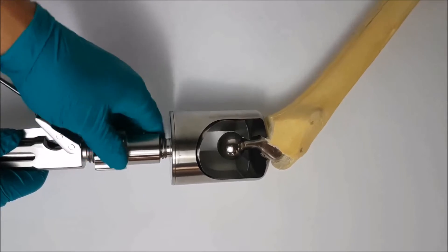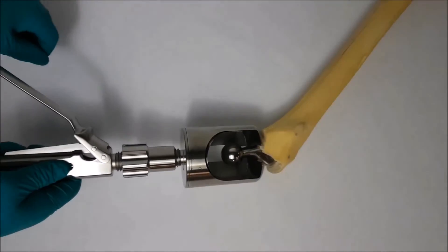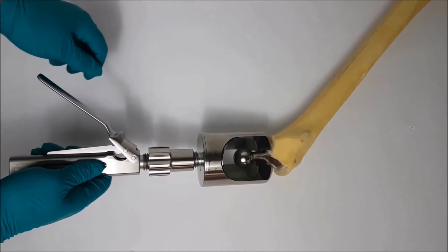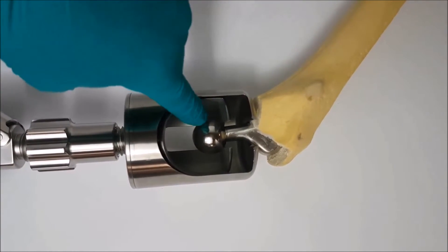Now, it's important to note here that you should not squeeze the lever on the handle while making adjustments to the knob. When adjusted, the outer cap rests on the hip stem and the inner sleeve rests on the ball.